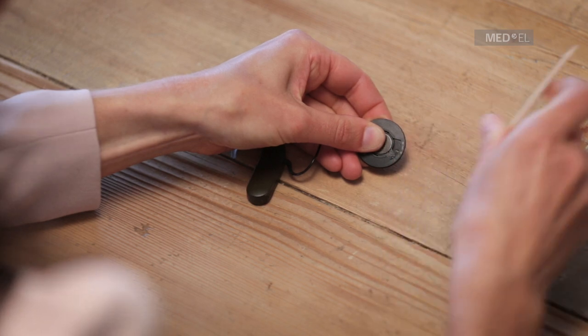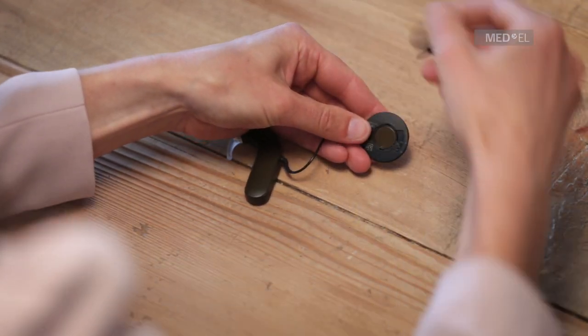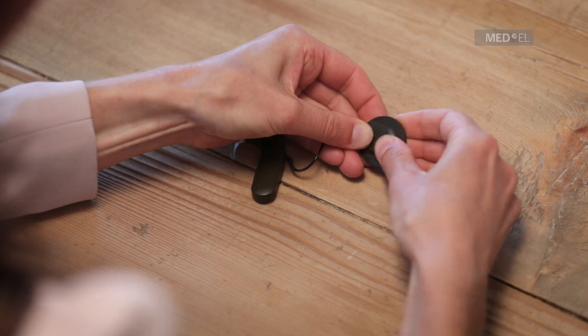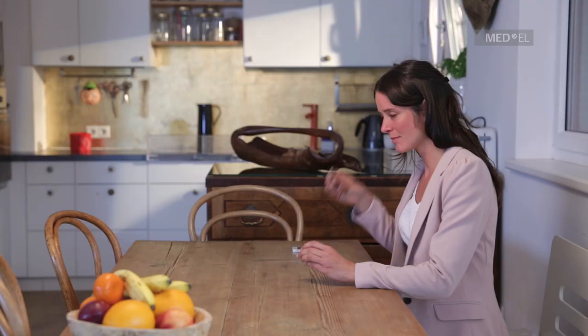Then lock the magnet into either the plus or minus position. Close the coil by pressing the cover and the base together.